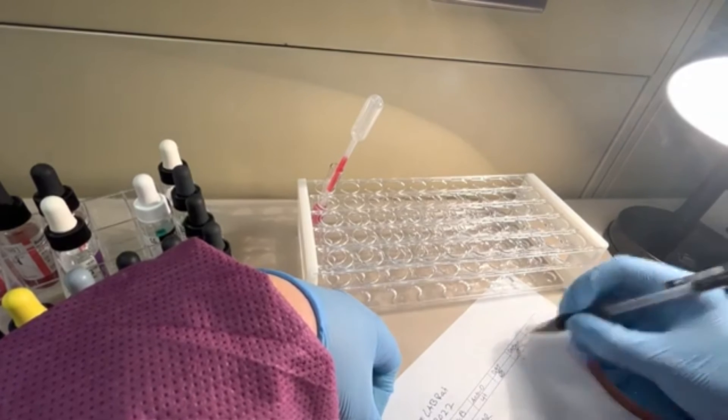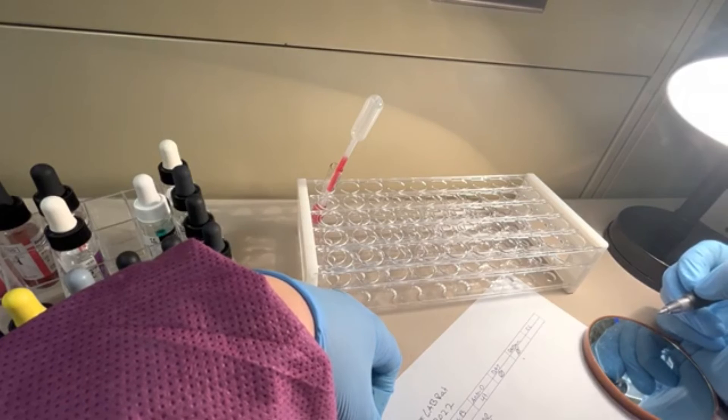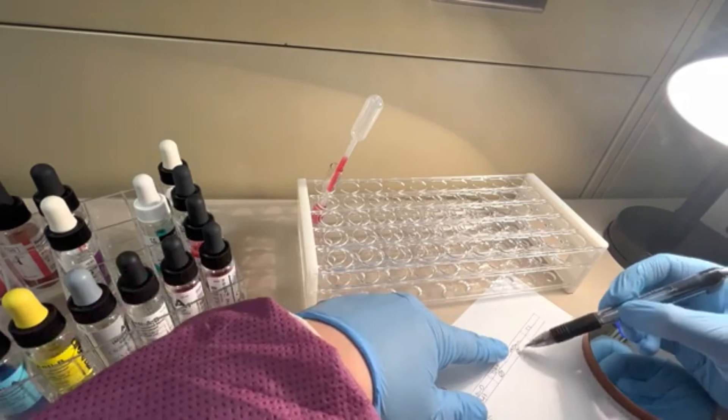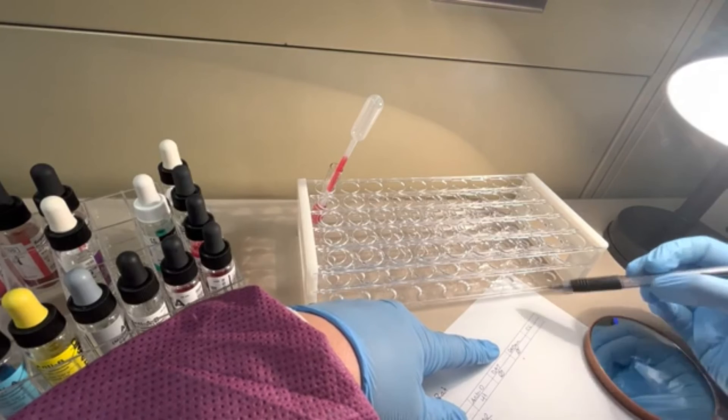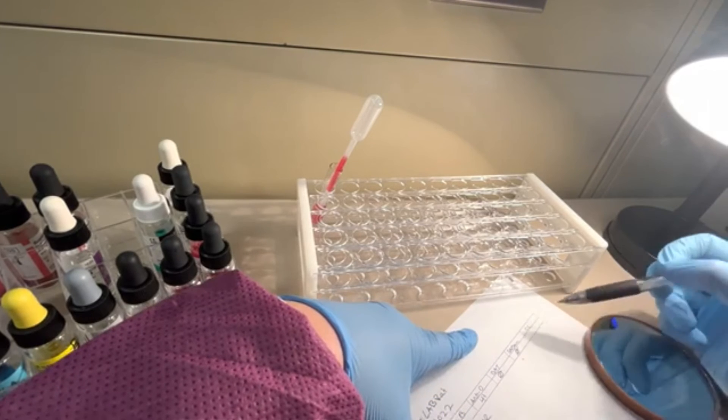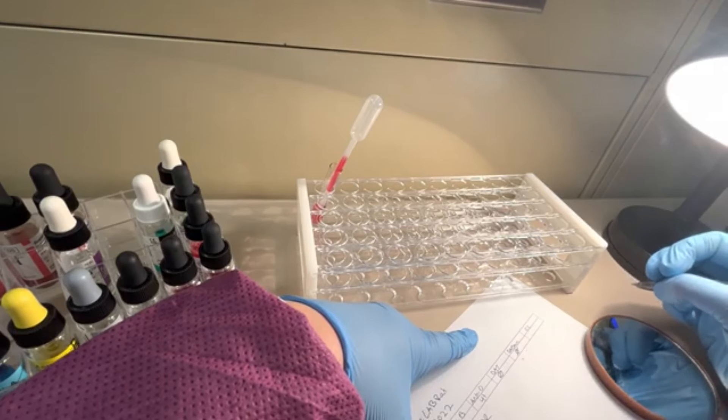And I forgot to put negative there for that five minutes. Shame on me. You should make sure to always result these immediately. We're just waiting for our last one, which is our check cells.